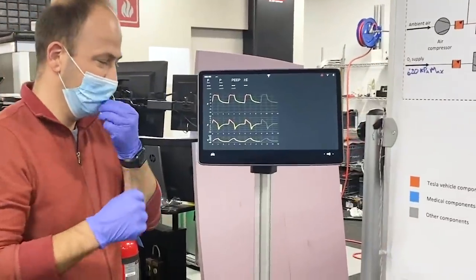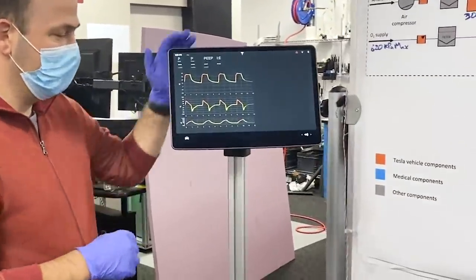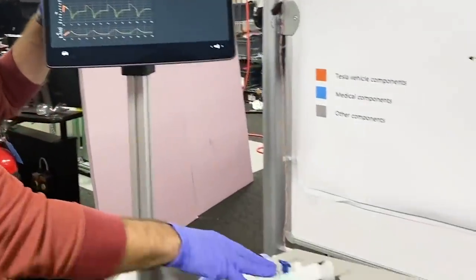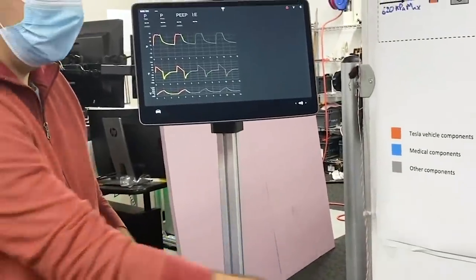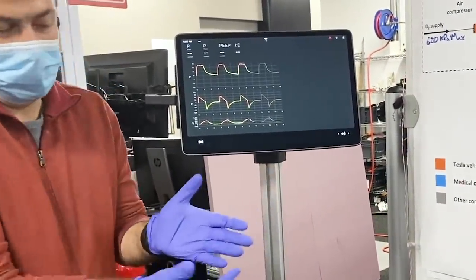Now coming back up to the top, let's see what's happening on the UI. First of all, we've got a respiratory simulator right here. It's basically simulating what a lung does. It has various amounts of compliance and is breathing.